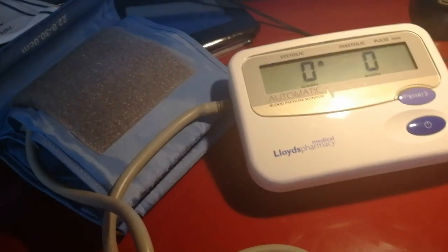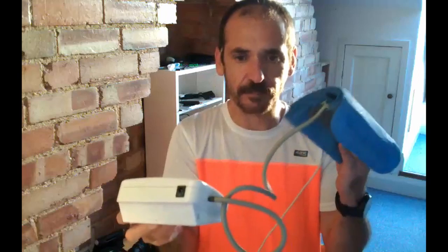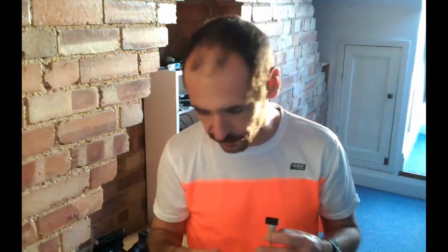Now, in order to show you the so-called Korotkoff sounds, I'm going to use this pressure cuff here. So here I've got a standard blood pressure monitor, and I'm going to apply this onto my arm, and we're going to listen to the sounds that are produced as the air pressure is released out of the cuff. Now there are supposedly 5 phases to the Korotkoff sounds, and it's going to be hard for us to distinguish more than about 3 of those phases with this cuff. And that's because it bleeds out the pressure a little bit too rapidly. But let's see what we can do with this very simple microphone.